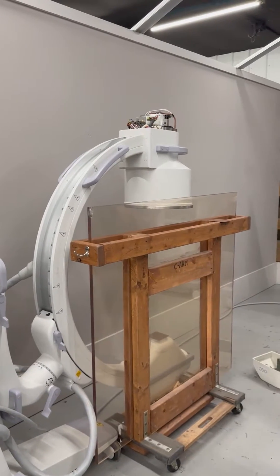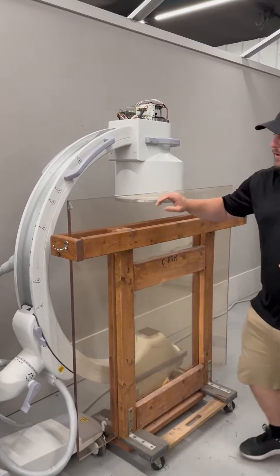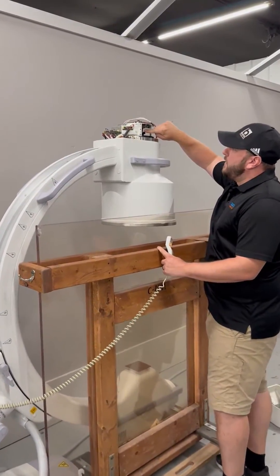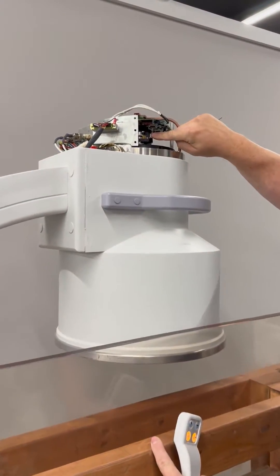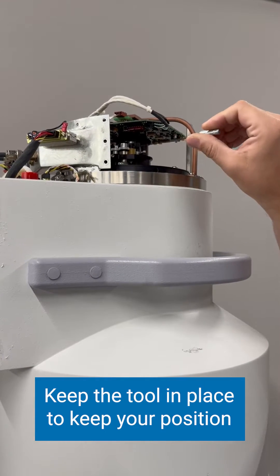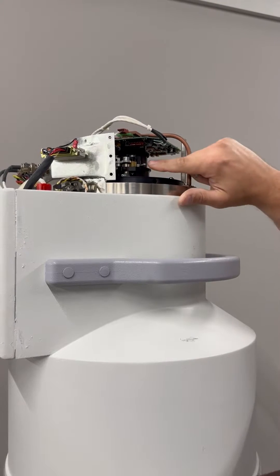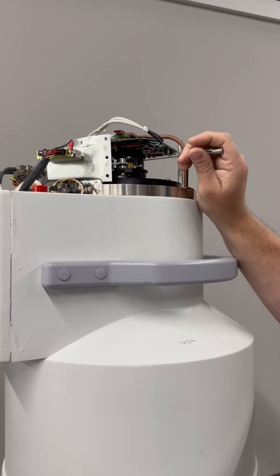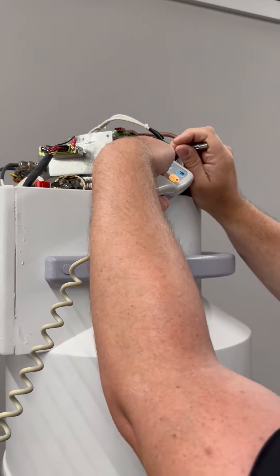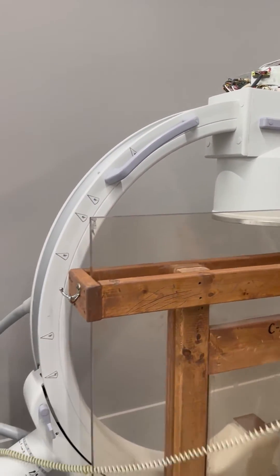In order to do that, we can plug in our hand switch or a foot switch. At the very top of our camera there's a little set screw on the fully open stop. We're going to take our six flute spline tool and just crack that set screw loose. Then, while taking an exposure, we're going to rotate this little gear until our KVP drops down to where we want it.